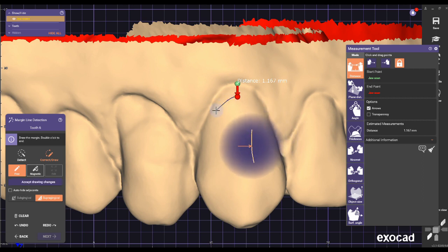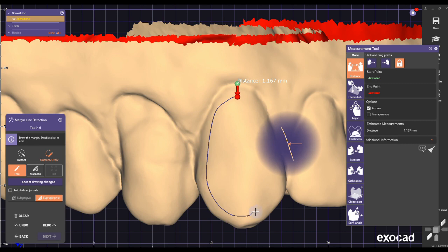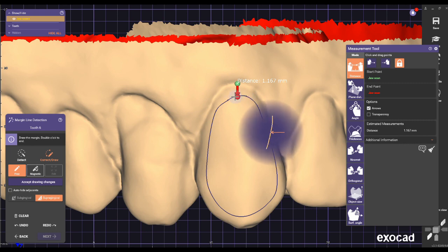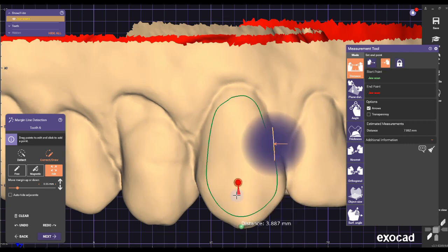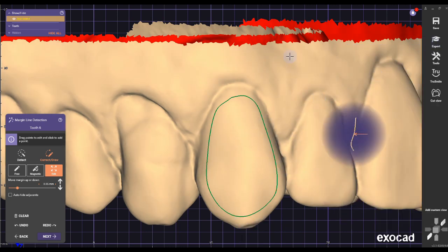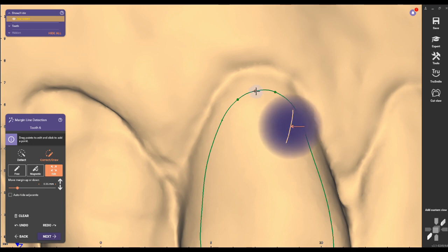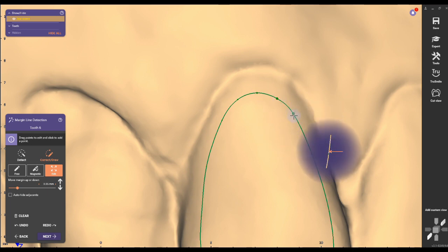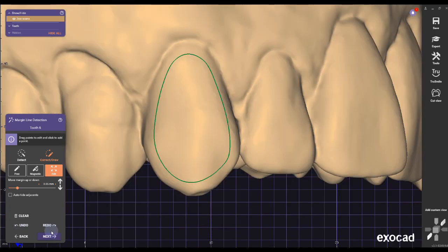You have to be very careful because this is going to be your window cutout. Take your time going around — you can make any shapes, circles, squares, whatever you want to cut out. The important thing is that it's even, it looks nice with no bumps, and all the windows are in the same position from the margin. Make it nice and flush with a nice curve.